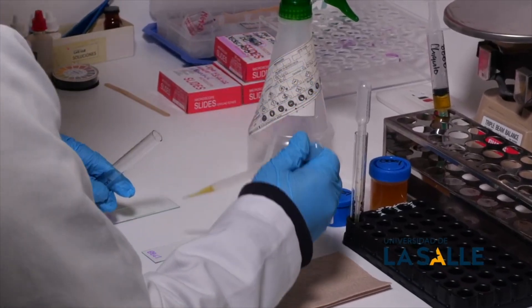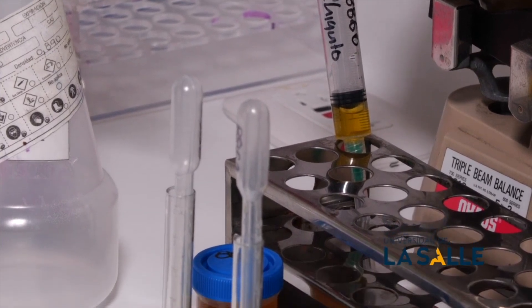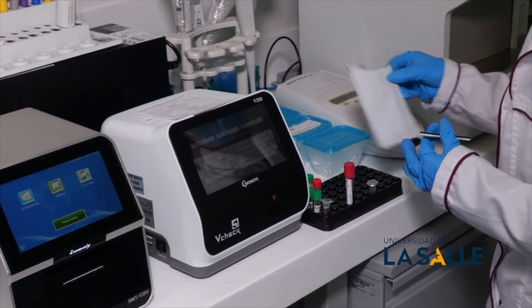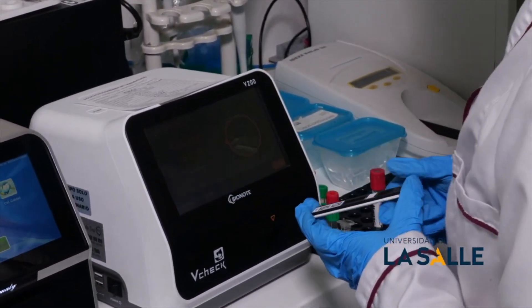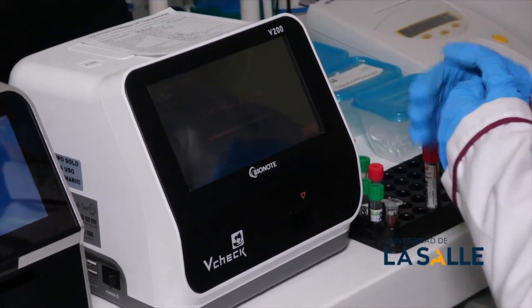We can also talk about zoonotic diseases, which are important and require mandatory control with some animals in the country. In this area, both in the clinical veterinary laboratory and in the microbiology and parasitology laboratory, we have the possibility for students in their last semester to learn the different techniques, clinical correlation, and other skills that we develop in this laboratory that allow them to advance in their careers and go deeper into subjects they were not able to explore during their undergraduate studies.